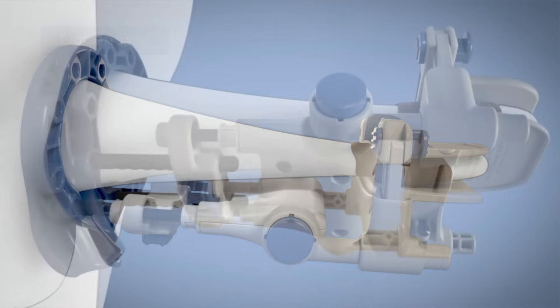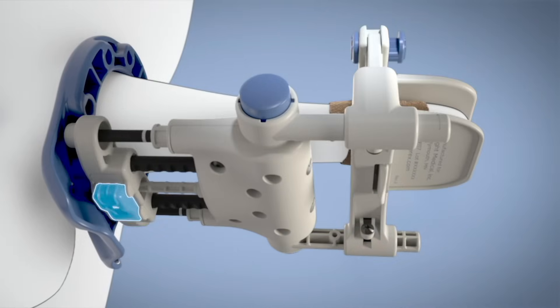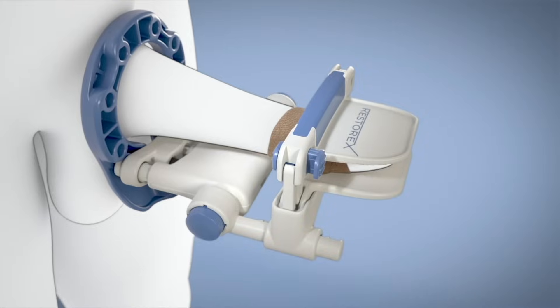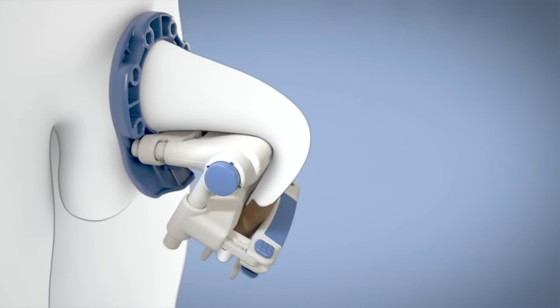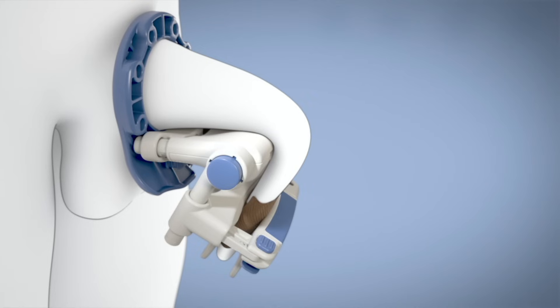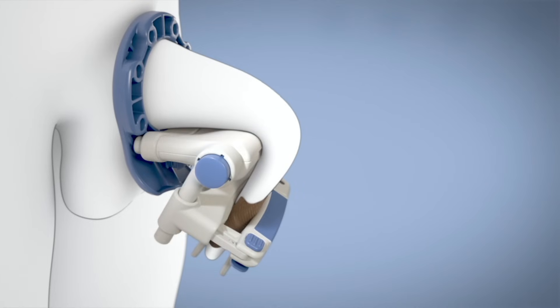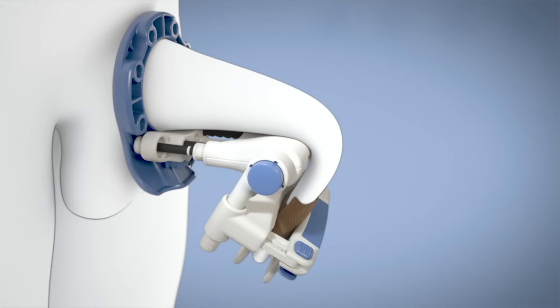After 15 minutes of treatment, take the tension off the device. Push both rotation buttons simultaneously to rotate Restorex in the opposite direction of your curvature, and then re-tension by slowly and gently releasing the springs.